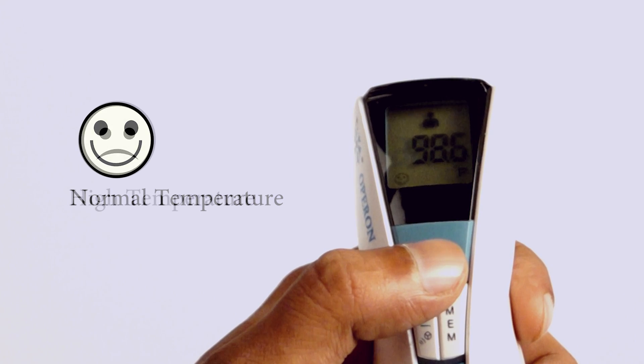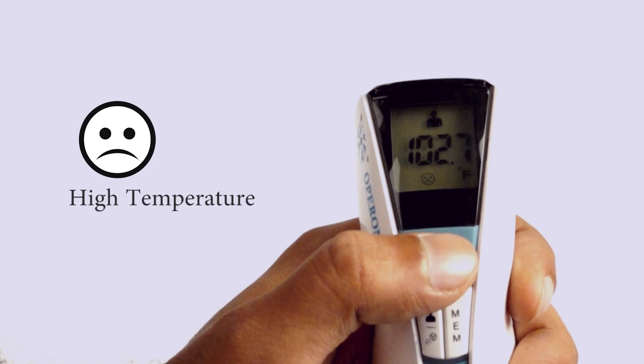Normal temperature will show smiley face and with fever it'll show sad face and gives an alarm.